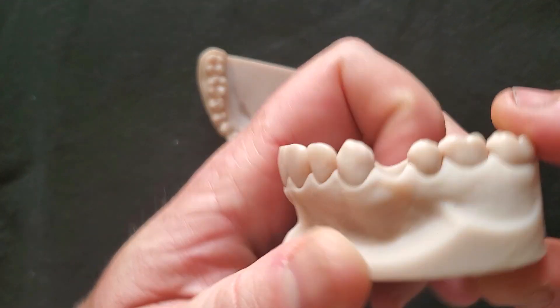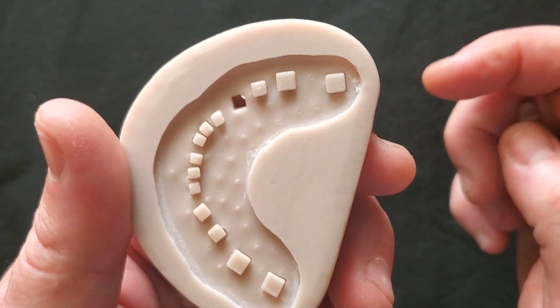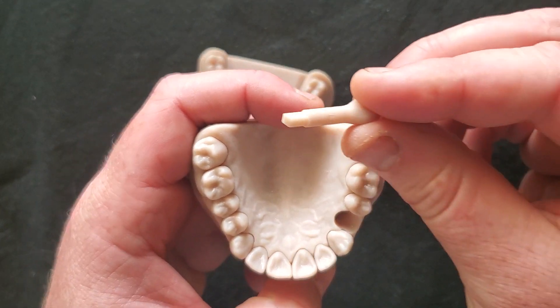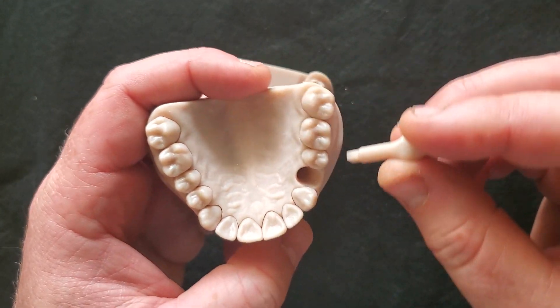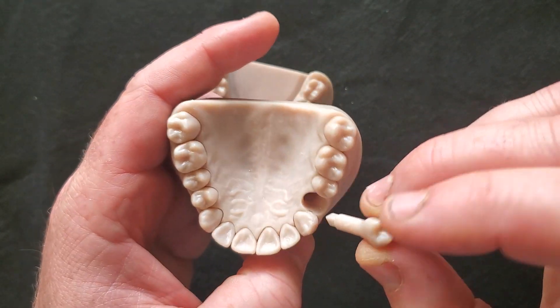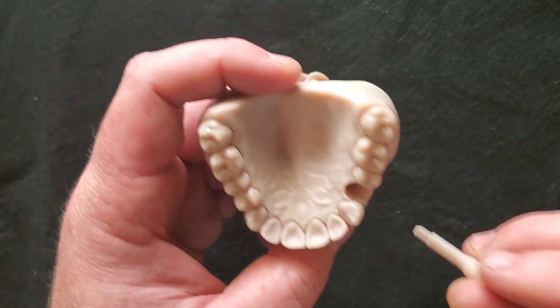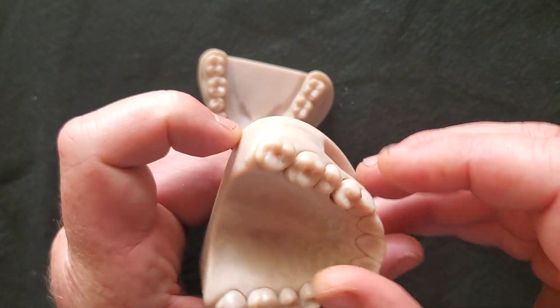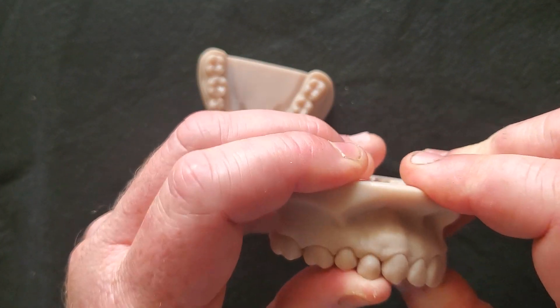You ought to hear a little pop as that square piece goes down through the hole — that prevents any rotation; it's an anti-rotational feature. The rest of it is just cylindrical. There's a little bit of spacer offset between the tooth and the model so that if your printer's just a little off on calibration, you should still be able to get these in.